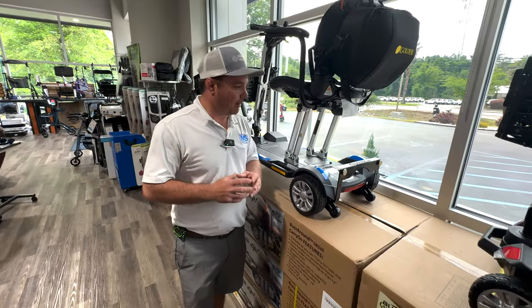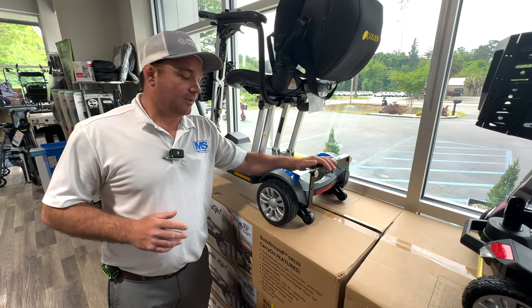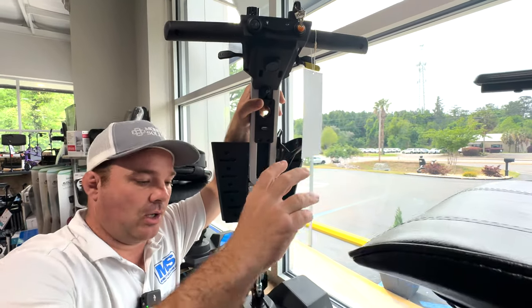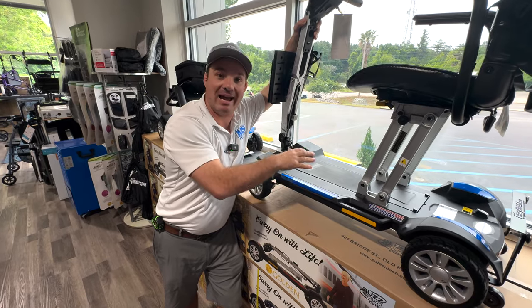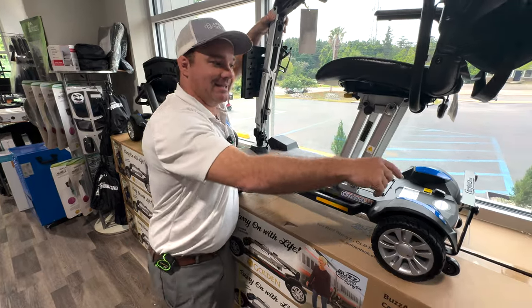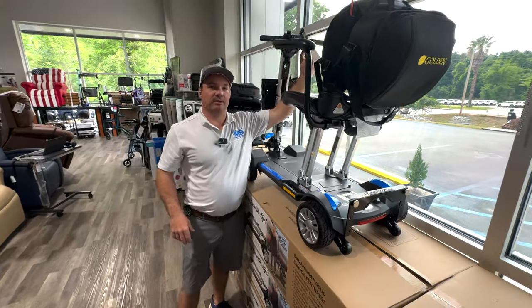It's been a tremendous upgrade to this scooter — no one had it before. People were calling us asking how to get it. We were selling it to other dealers and it's been such a good help for some people. You don't always need it, but if you do, we have it. With this unit, we also have the raised push button that goes right here — no one else has it, we made it. We also have an extended lever that can be attached to your current one. If you have this scooter and need a new battery, we have the 15 amp-hour, 6.5 amp-hour, and 12 amp-hour batteries. You can add the raised push button very easily — it's just 3M tape, put it right on there. It allows you to use your palm or your foot to pop this battery up.